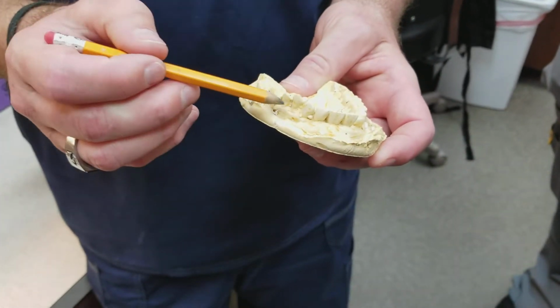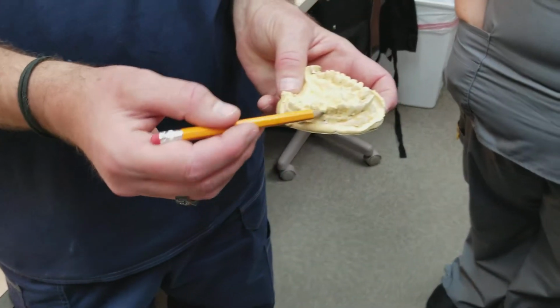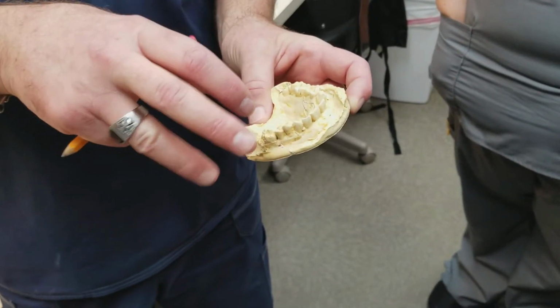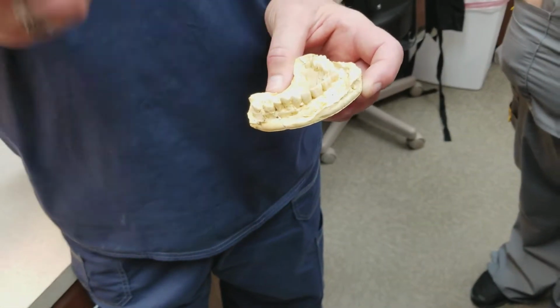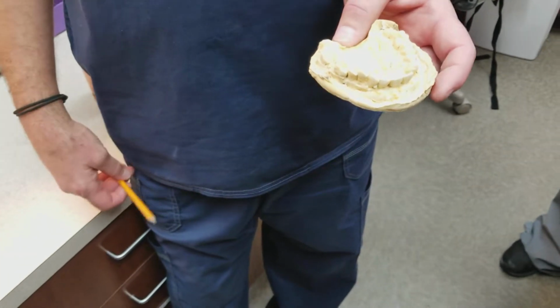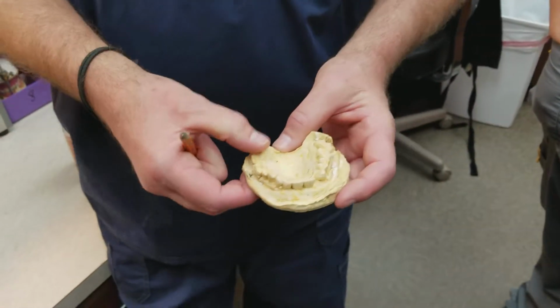Just make sure that the full tooth anatomy is on the occlusal, the buccal, okay? And when you pour it up, you want to have everything there. Not so much the labial sulcus and all that, because it's not going to extend down that far. But if it's an immediate, then you're going to need all those landmarks that I just showed you. But that's pretty much what I'm looking for.